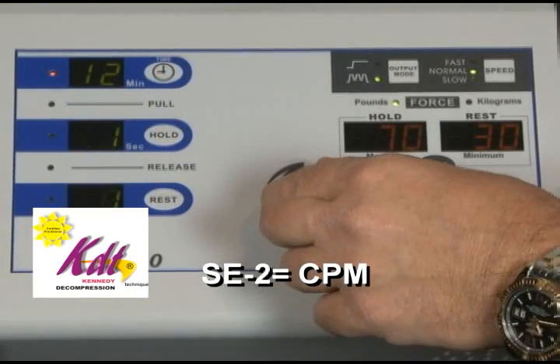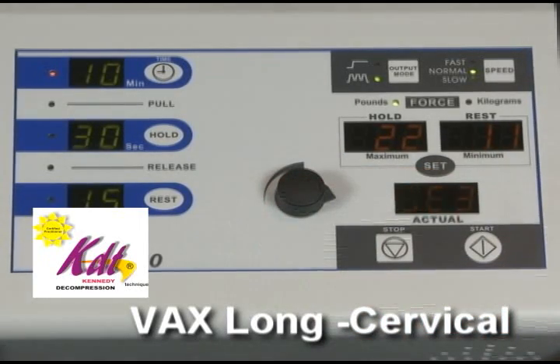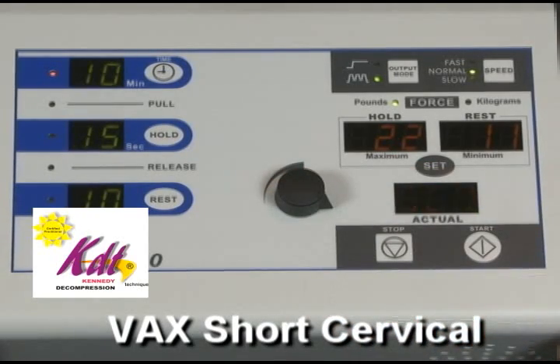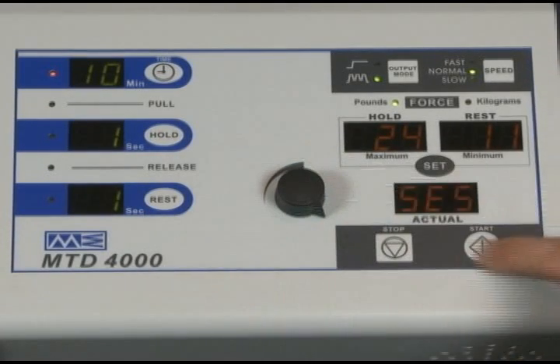SE2 is the CPM or continuous passive motion lumbar protocol. SE3 is the VAX long cervical protocol. SE4 is the VAX short cervical protocol. SE5 is the CPM cervical protocol. After selecting a protocol, press the set button as shown.